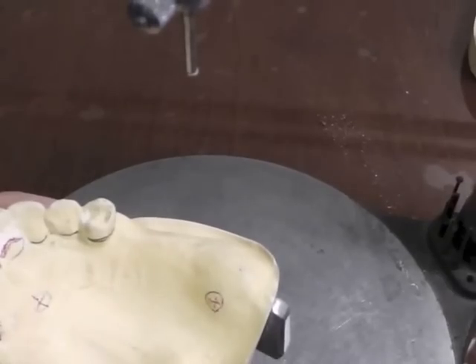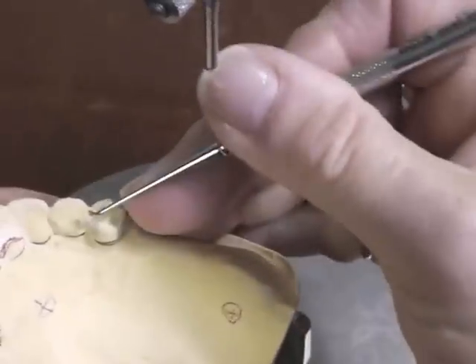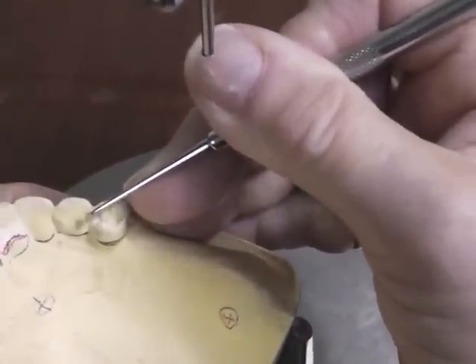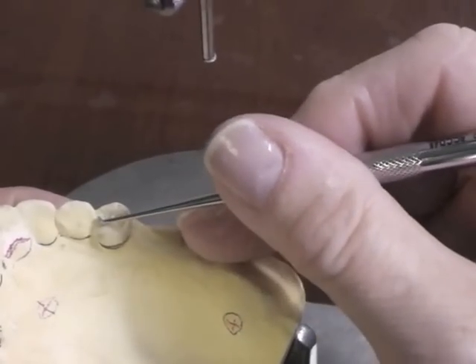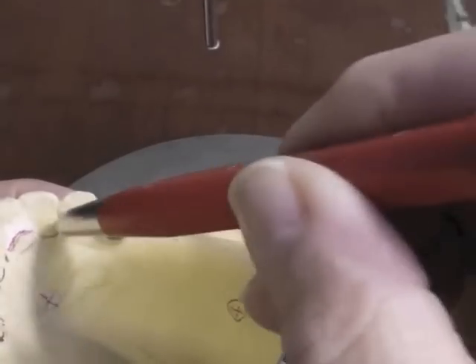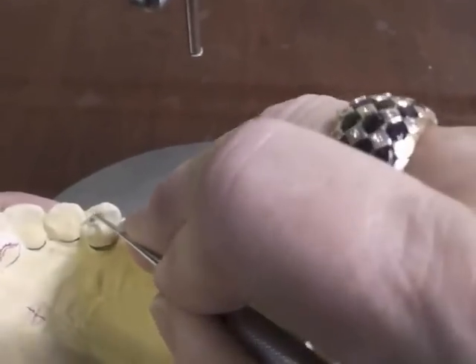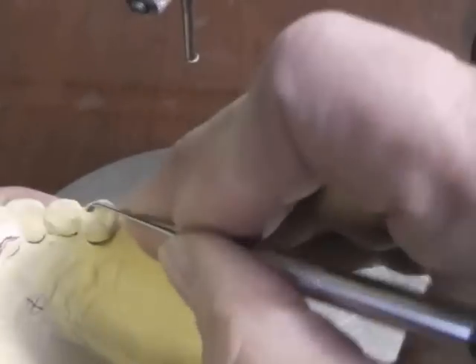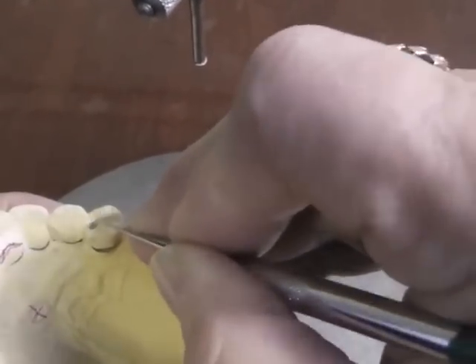I prepare one on my canine and I'm going to mark this so I'll remember to cut it in the patient's mouth. For my clasp assembly I have to remember that I've got metal coming up over this edge, so I have to remove some of this marginal ridge area for metal to get up into that tooth area without changing the occlusion. Then I'm going to prepare a spoon-shaped rest, which I do often with a round burr.